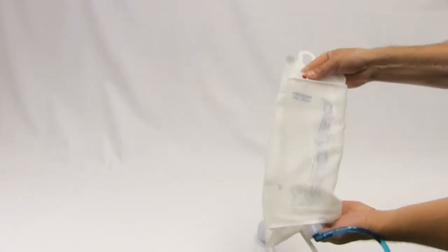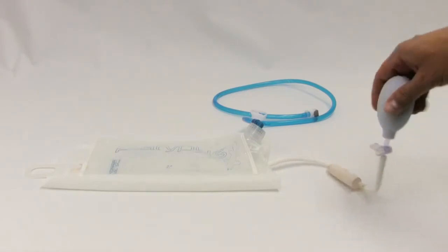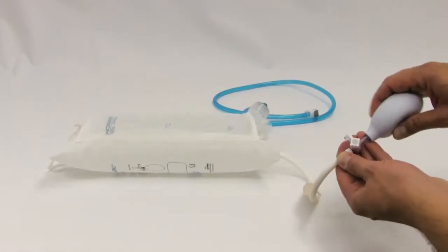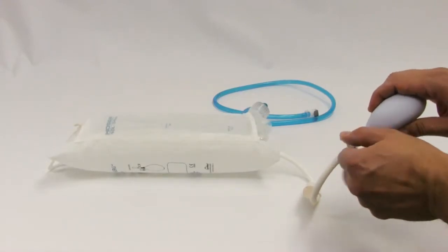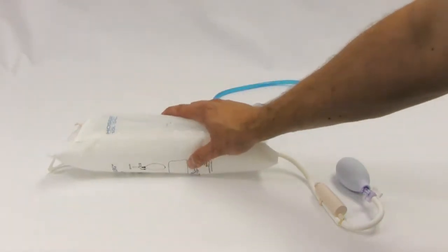Place the bladder in the infusion bag. Pump the inflation bulb to inflate the bag and then close the stopcock to hold air pressure. The pressure should be approximately 10 to 15 millimeters of mercury. Use your best judgment but avoid over-inflating the bag.